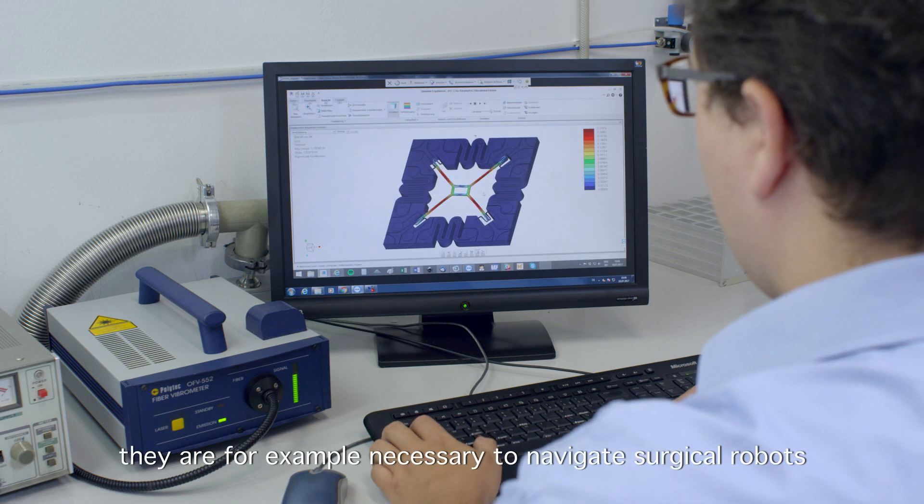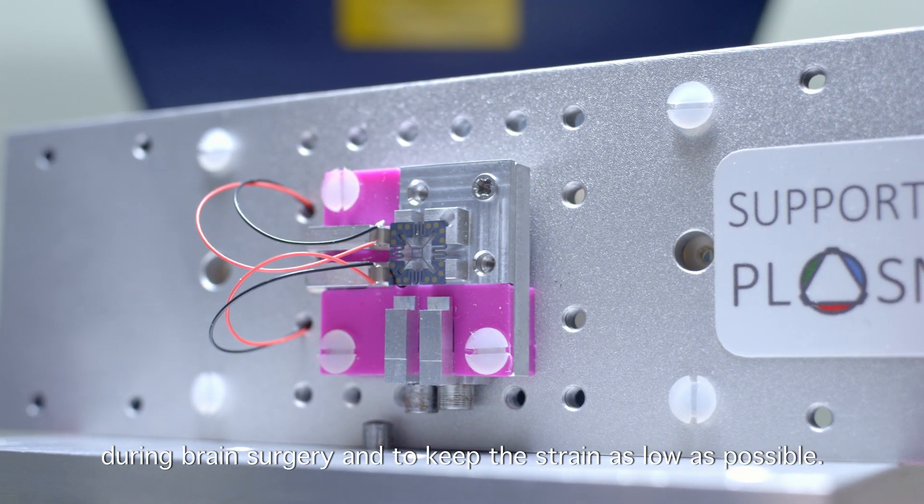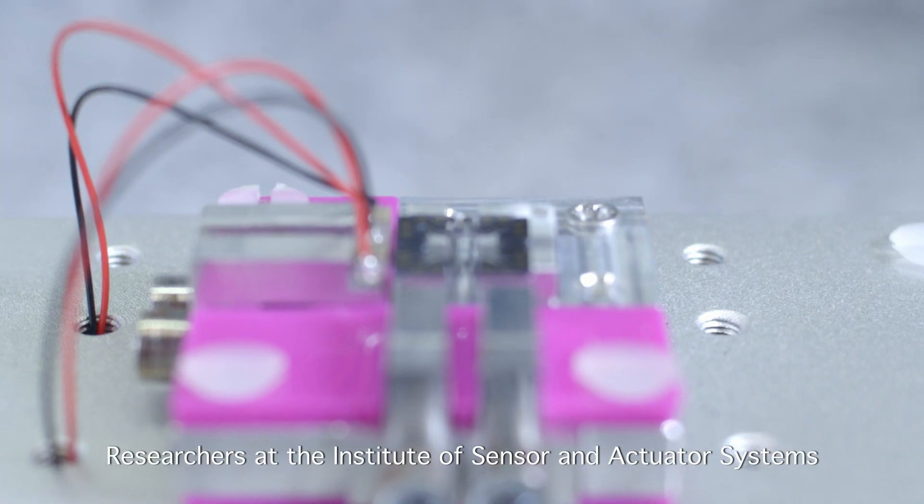They are, for example, necessary to navigate surgical robots during brain surgery and to keep the strain as low as possible.